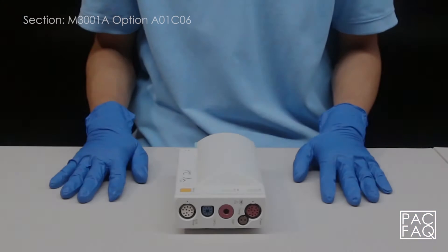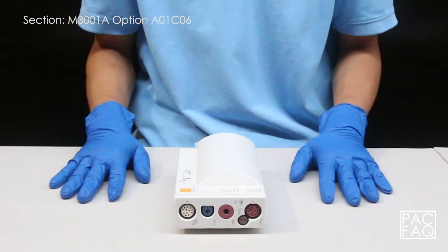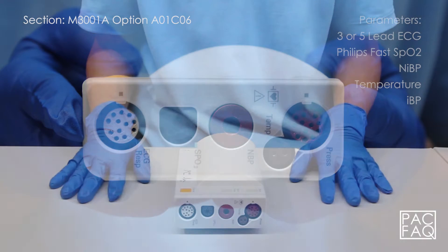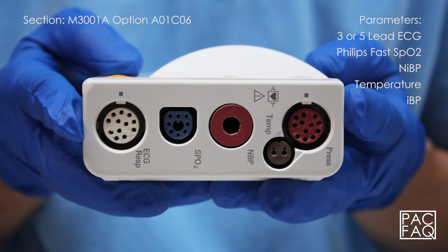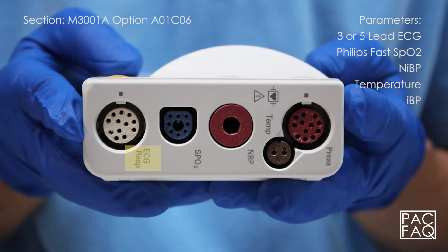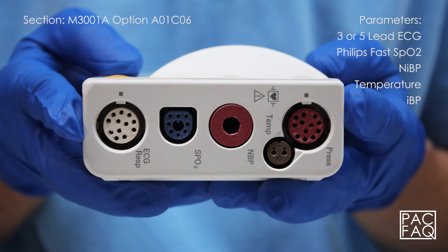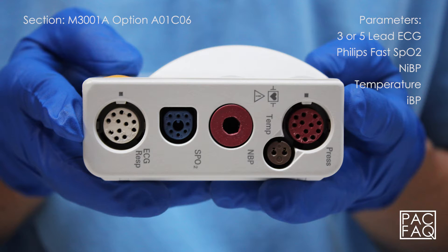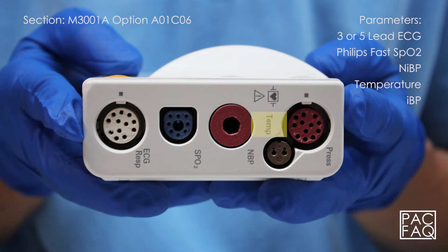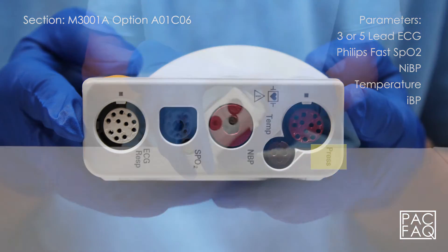Here we have option A01 C06. This unit comes with parameters 3 or 5 lead ECG, Philips fast SPO2, non-invasive blood pressure, temperature, and invasive blood pressure.